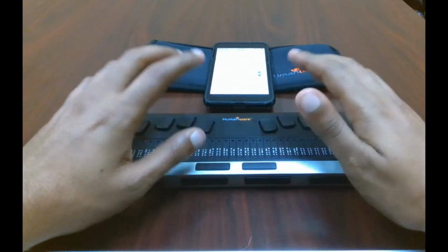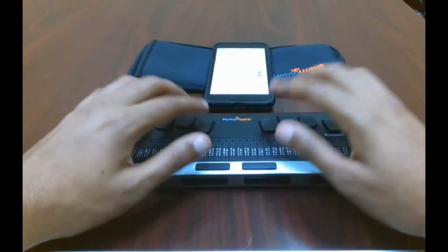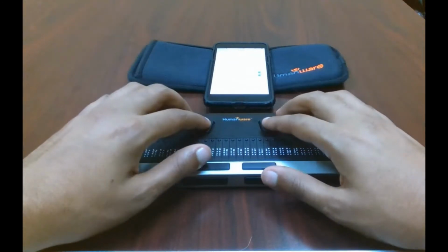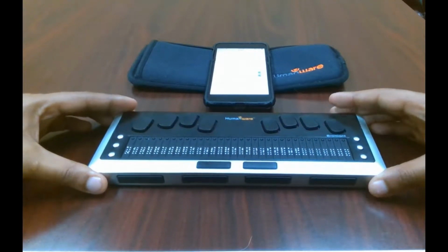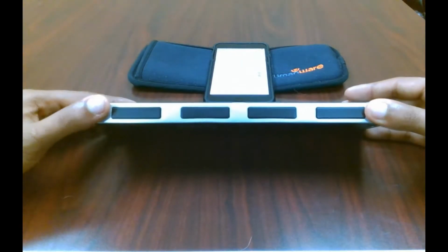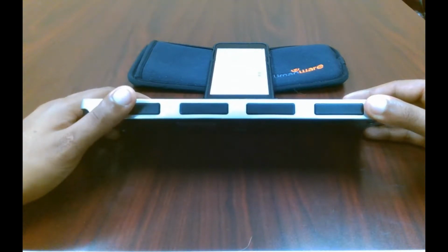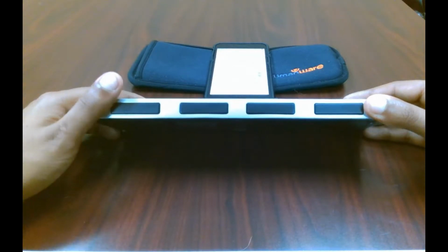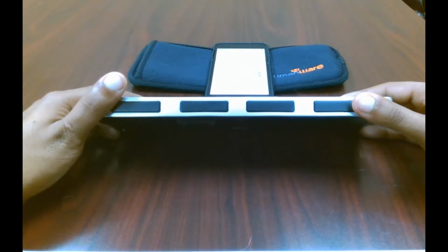All right, and finally, we are going to be going over some basic commands and where you can find these keyboard commands or Braille display commands to control your device. But let's start out with the navigation and selecting. So your basic navigation keys are going to be these thumb keys. So the far left one, like we said, will go back one whole selection. Input. Contracted. Button. And the right key will go forward. Braille screen input. 6 dot.